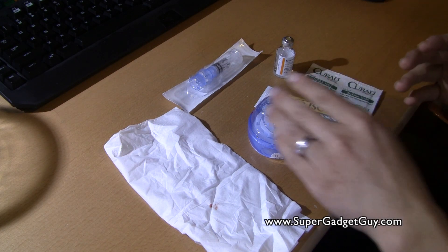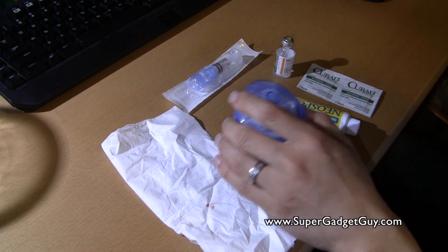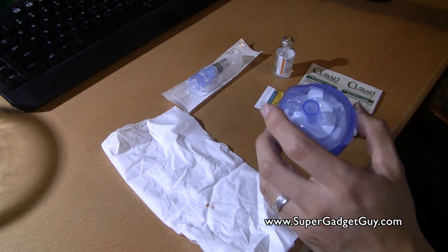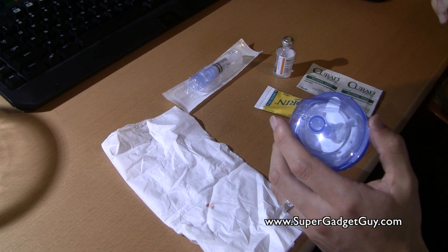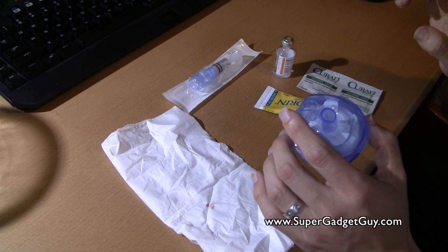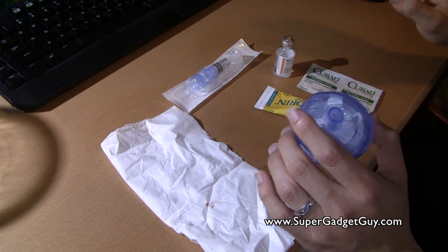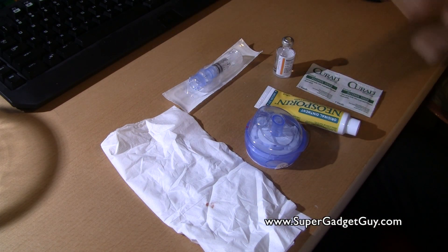In order to do a set change, I have a tissue ready just in case, because I had a really bad insertion. You don't know at the time, and then when you do a set change and pull out the old set, the blood — basically it's like a fountain — it just squirts out. Loads of blood. I was freaking out because you have pressurized blood coming out of your gut.